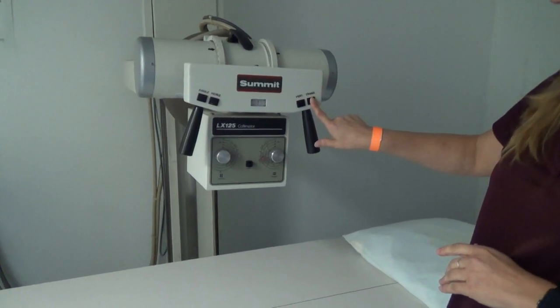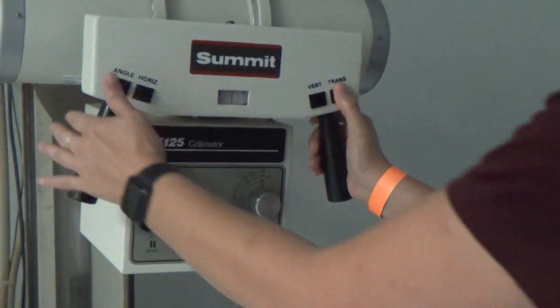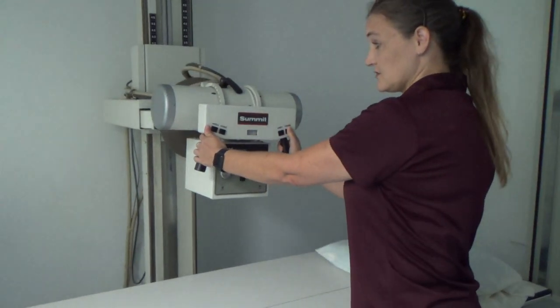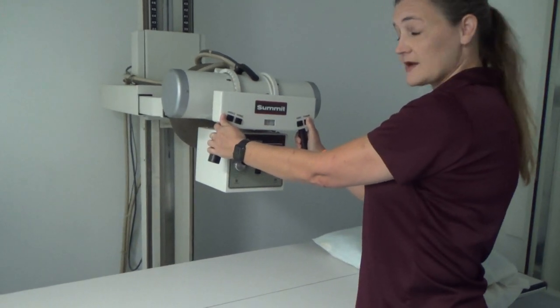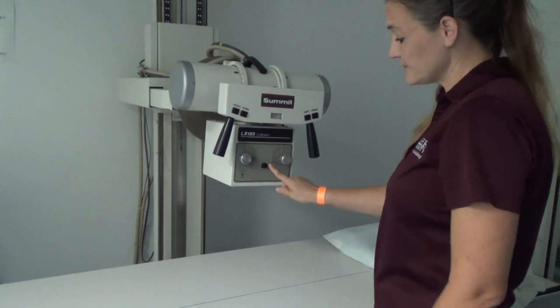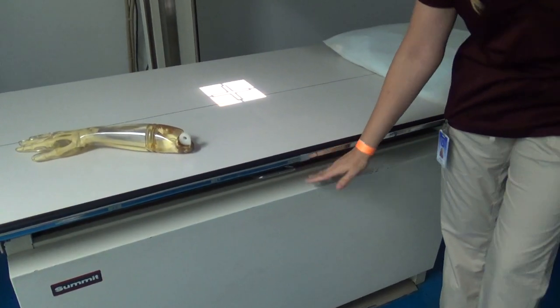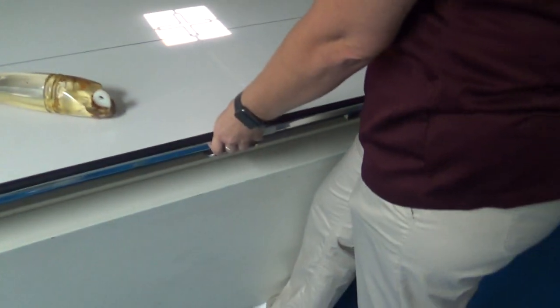The first button here is your transverse. If you push it in while holding it, this allows you to move your tube towards you and away from you — going across the table. There is an automatic stop, which is your detent that you'll find for your transverse. This is important because it will help you find the very center of where your bucky tray is under the table. So there's that bucky tray — we spoke about this in class.